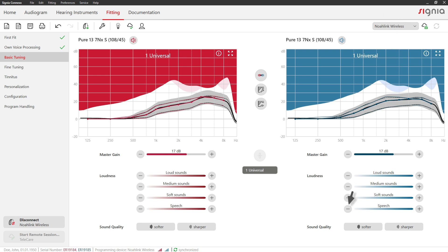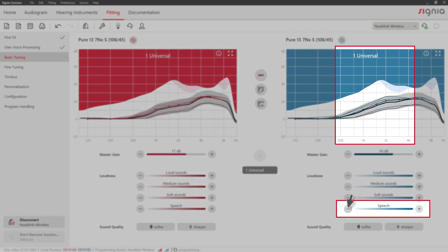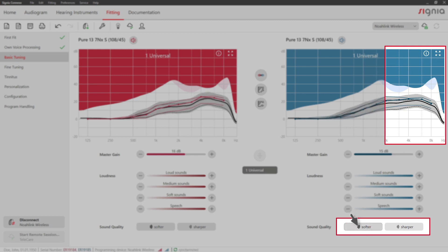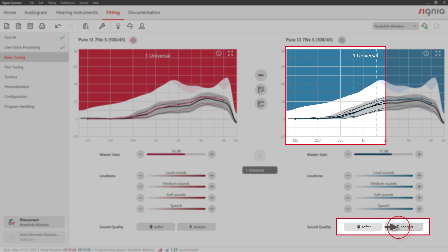Speech will alter the gain for medium and low levels between 400 Hz and 5 kHz. The setting Softer decreases the gain of frequencies above 2 kHz and increases the output for frequencies below. The setting Sharper has the opposite effect.